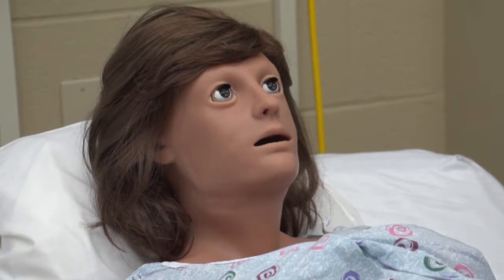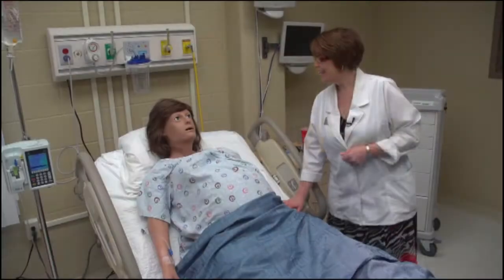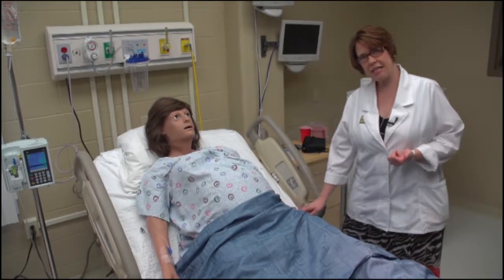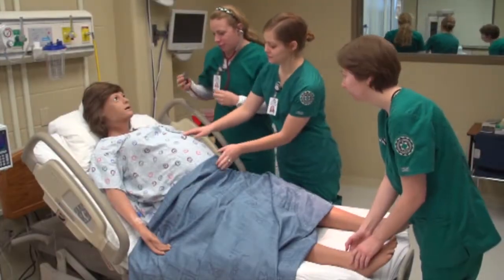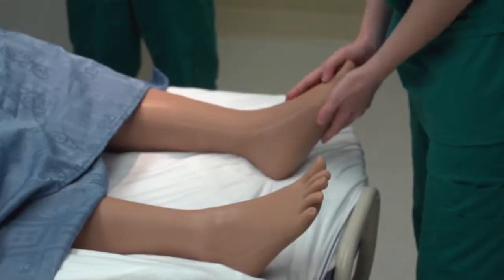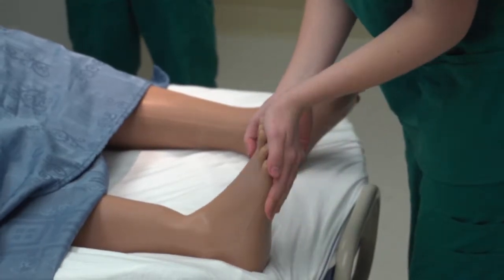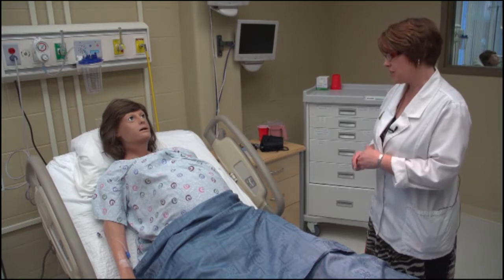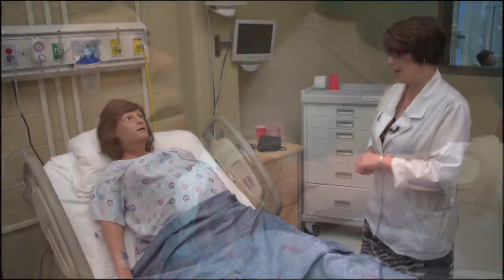Good morning, Victoria. How are you doing? Oh, I'm okay today. So she can respond to the students' questions, and that helps them suspend that disbelief a little bit that she's just a doll or she's not a real person. So they communicate, and we encourage them to talk to her, not to us back in the control room. So that's another really nice feature that she has.